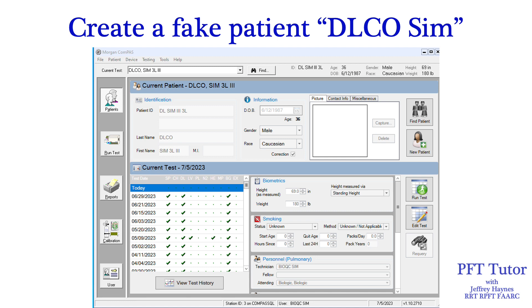The first thing you'll need to do is create a fake simulation patient, which you can name DLCO Sim or whatever you'd like. The age, height, and other demographics don't matter — enter whatever you'd like. Our laboratory follows technologists' performance in our software, specifically the percentage of tests that satisfy ATS ERS quality standards, and we don't want those data affected by BioQC or DLCO simulation testing, so I created a fictitious technologist which I call BioQC.